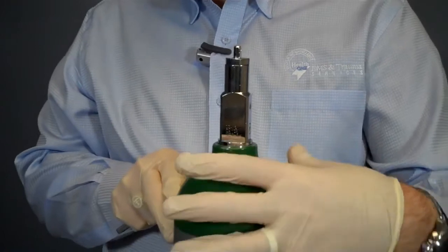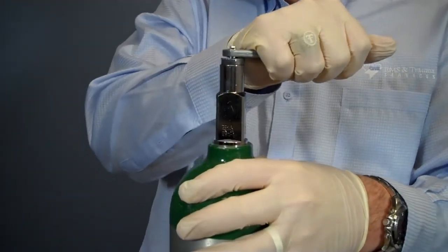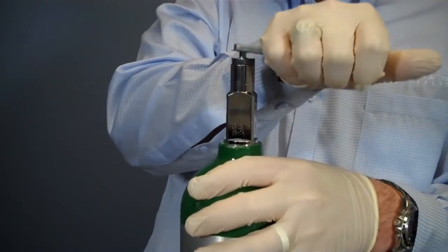Next, I will ensure there is no debris in the orifice of the oxygen tank by cracking open the valve quickly. Before I do this, I need to make sure the valve is not facing me or any bystanders.